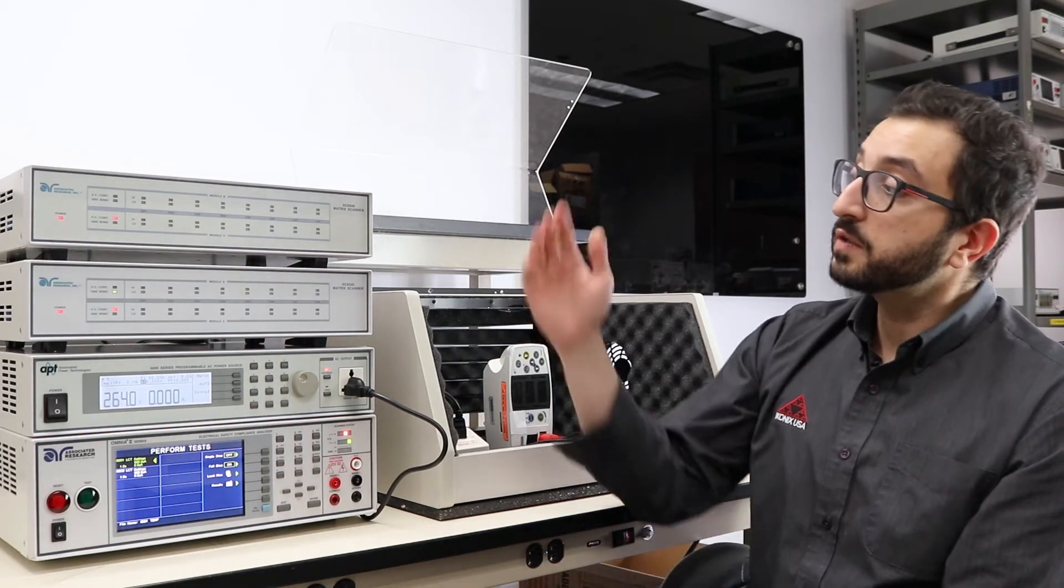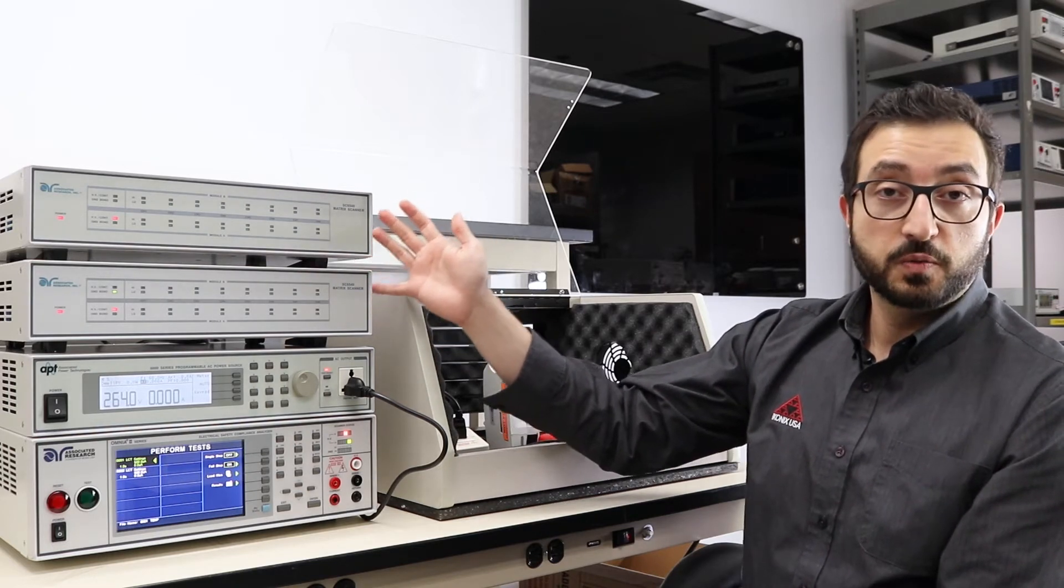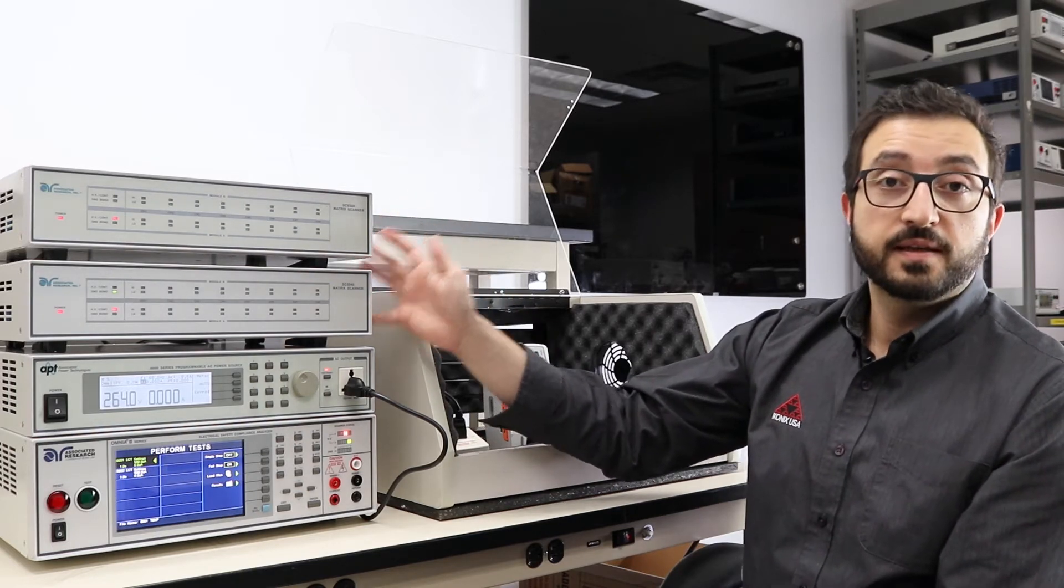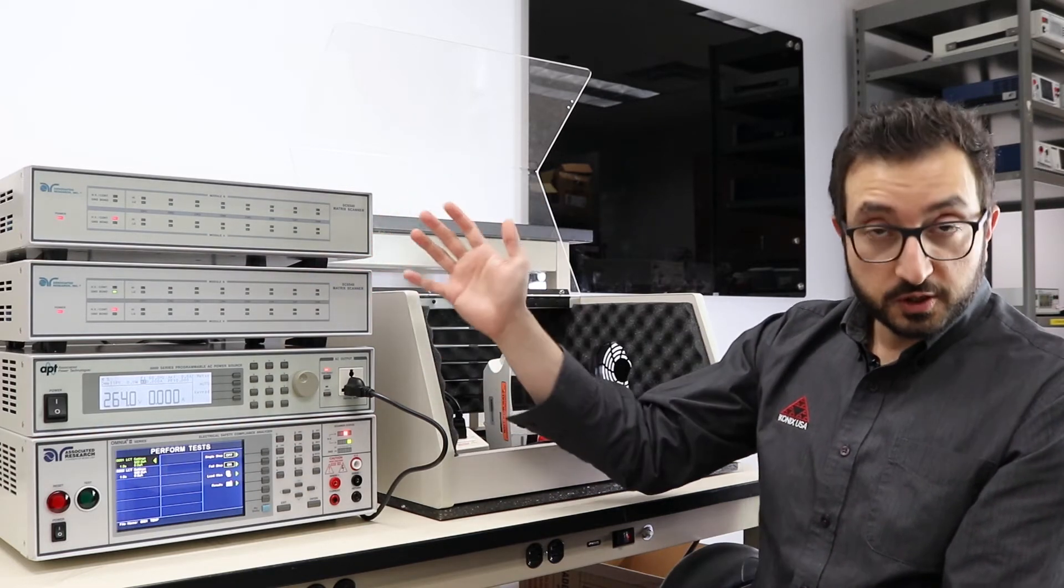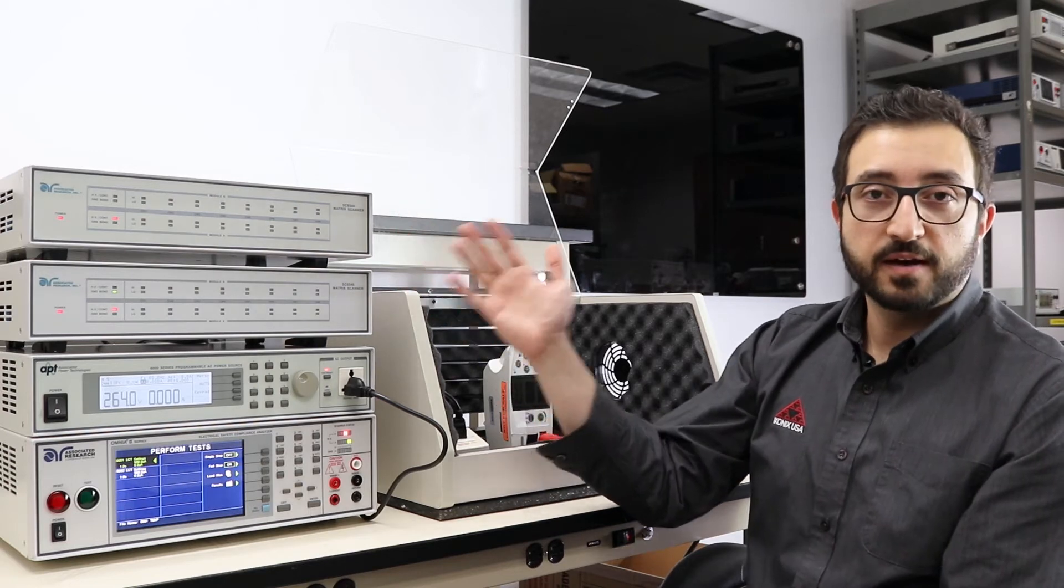I'm also using a set of multiplexers to perform the necessary switching of voltage in a safe manner.